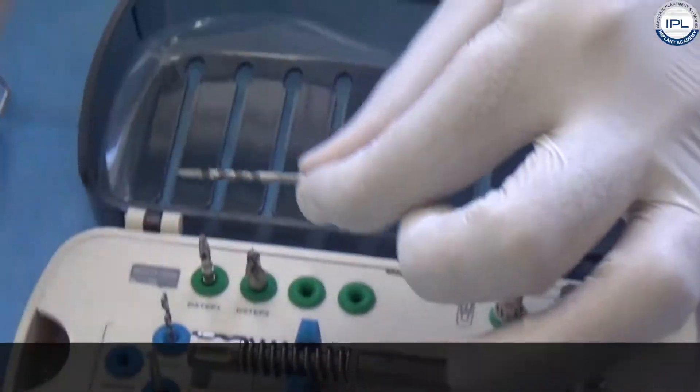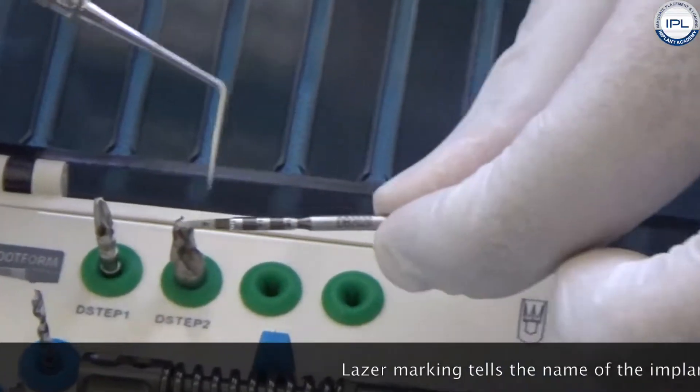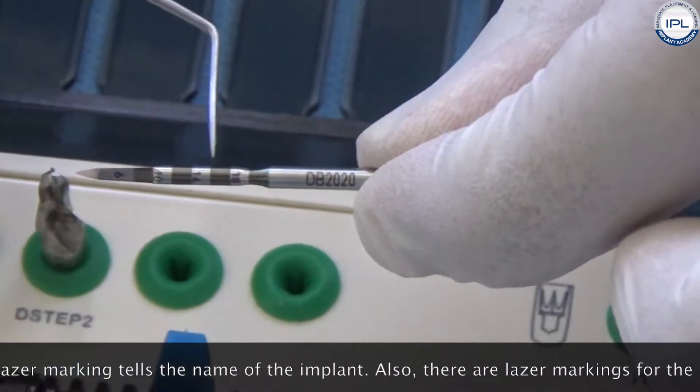DB2020. There's a laser marking here that tells you the name of the implant. Also there are different laser markings for the depth.